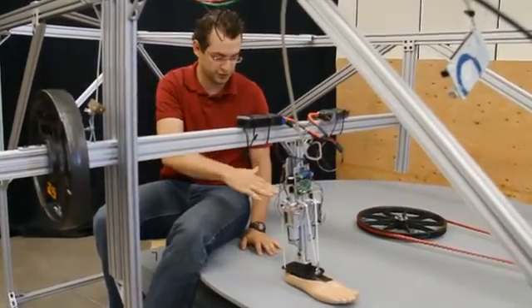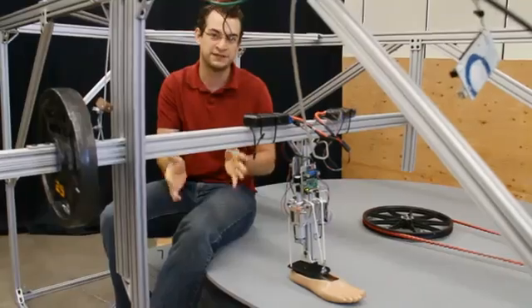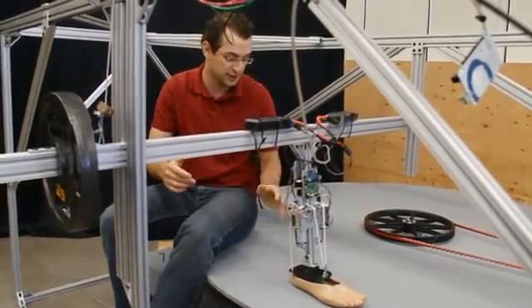Because we can control both rotations of the ankle, it really facilitates turning, and that's one of the main goals of our project.